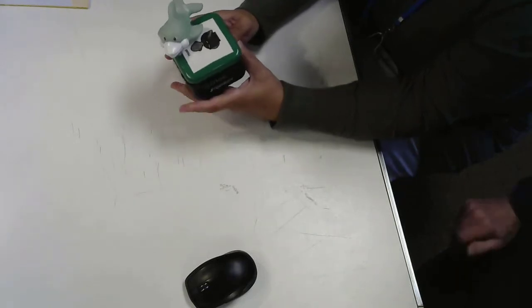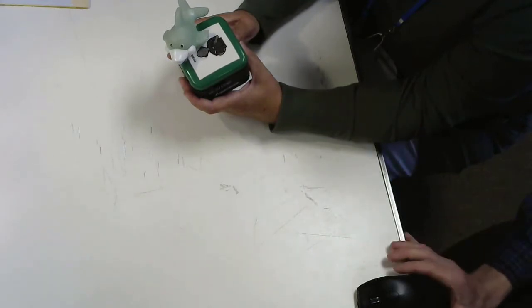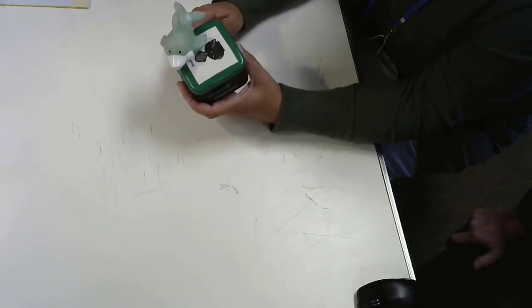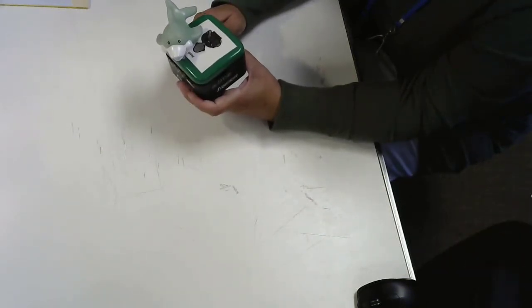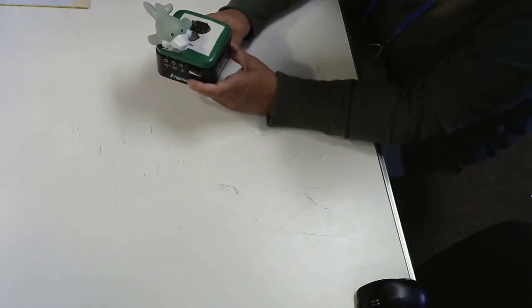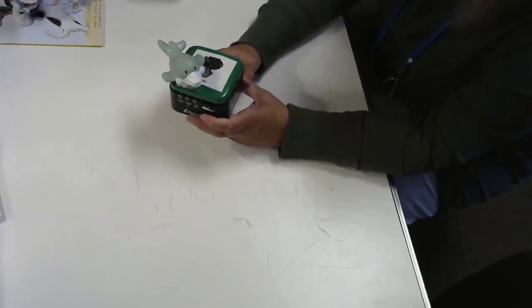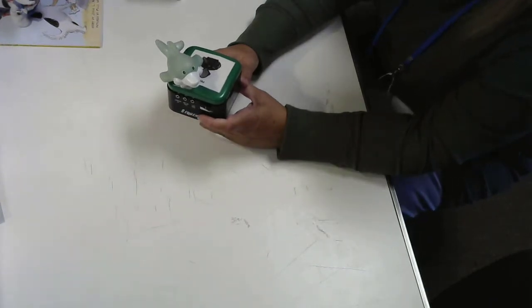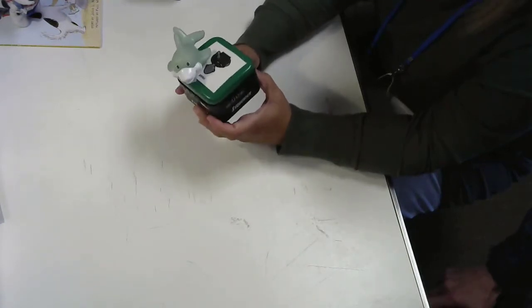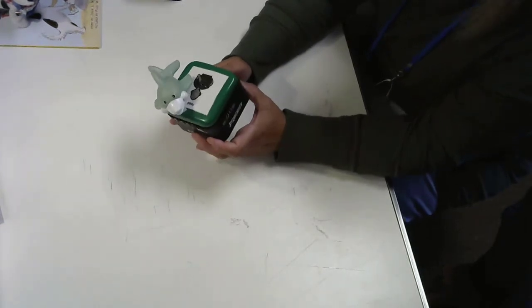Sequential messaging, as you know, is you record in a series of messages, and with each activation, it plays back those messages in the order you recorded them. So there's lots of fun things you can do with sequential messaging. In fact, under resources on our website, there is a handout on 100 ways to incorporate sequential messaging. Just want to talk briefly about the features of the device because it makes it a lot more versatile than people think at just first glance.